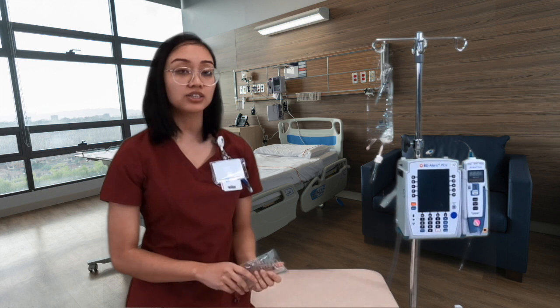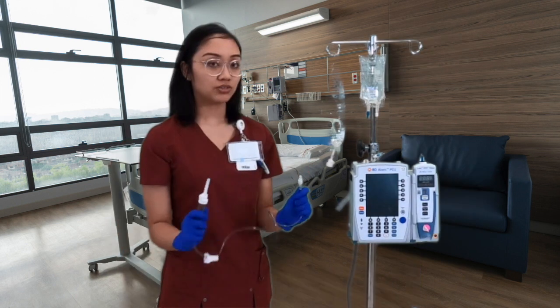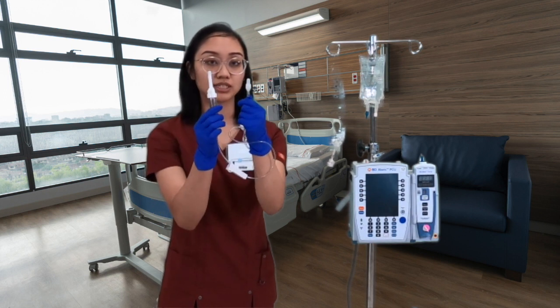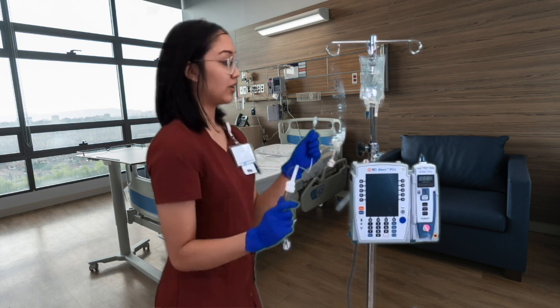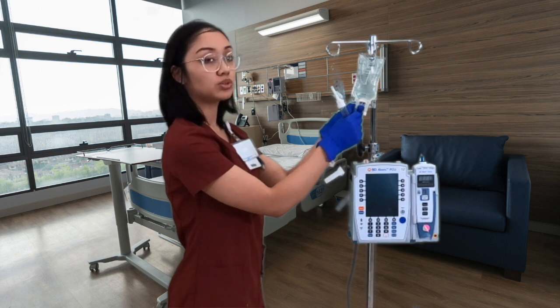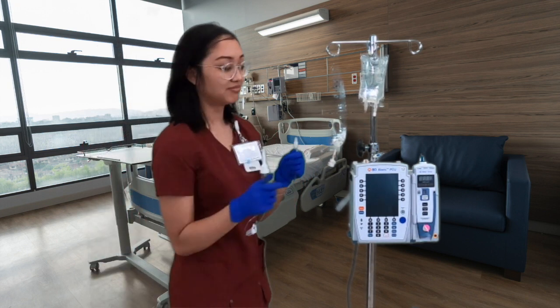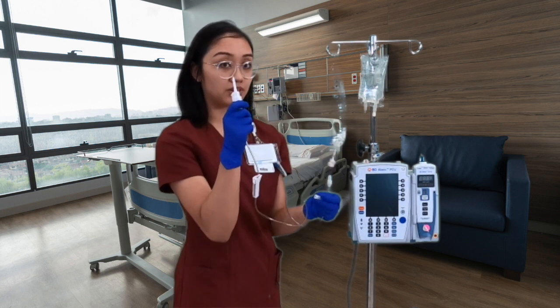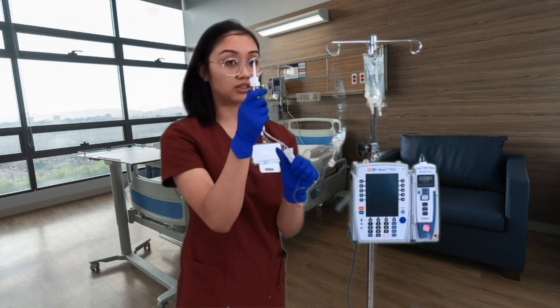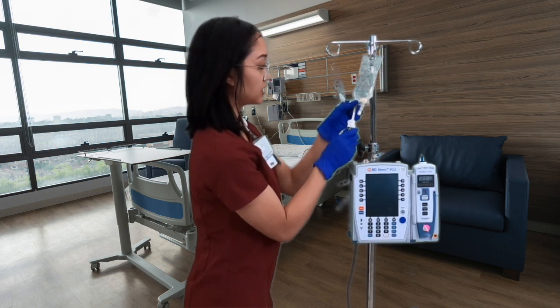Now let's learn how to prepare and administer a secondary fluid antibiotic such as rocephin or cefoxitin. You'll need your secondary set tubing and your antibiotic bag. First, spike the bag — make sure both the spike and the bag port are clean; use aseptic technique. This is a blue tab so pull it off; if it were wings you would twist. Remove the spike cap without touching the tip, then insert and twist to spike.